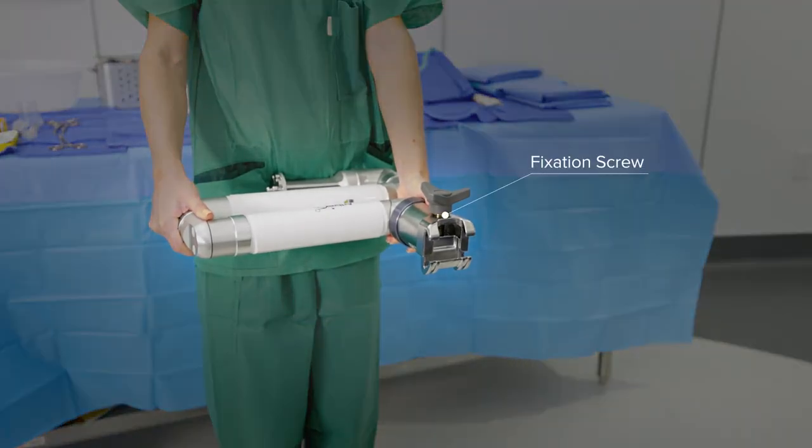Open the fixation screw of the clamp completely. Do not open past the stopping point. This may damage the screw.